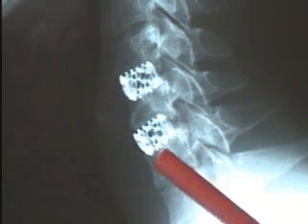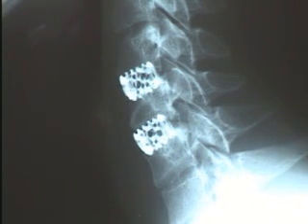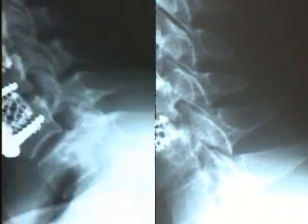Because of the stable nature of these implants, this allows the patient to lead a normal life and be more active almost immediately after surgery. Occasionally, when there's need for further stability in a neck that has been damaged or injured, by the judgment of the surgeon, a plate may be placed with screws into the bone above and below where the cage implantation took place. This would leave a very stable construct in the neck to protect the patient against further injury or wear and tear at those levels.